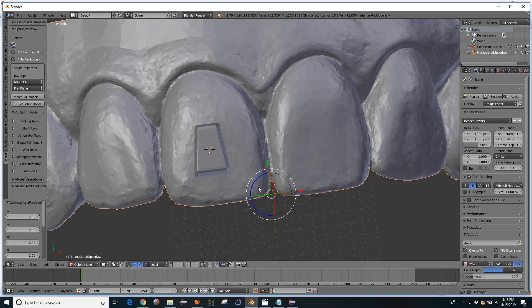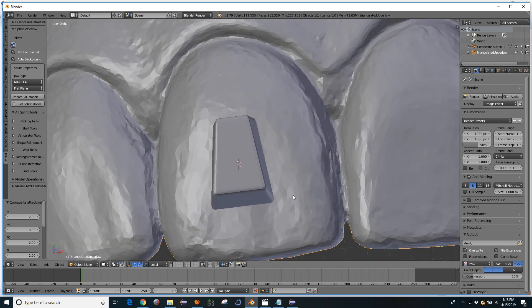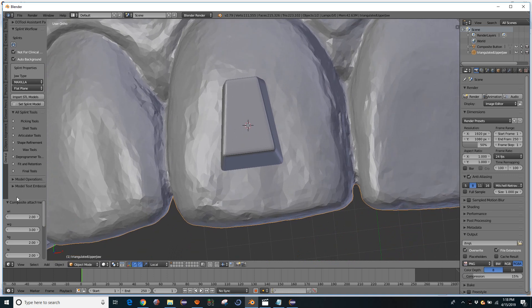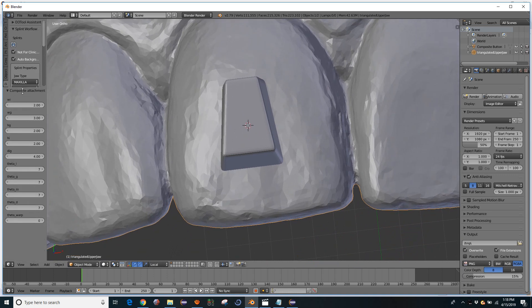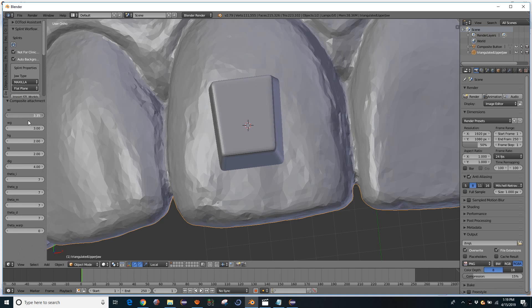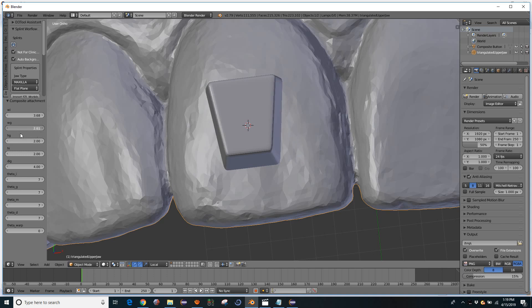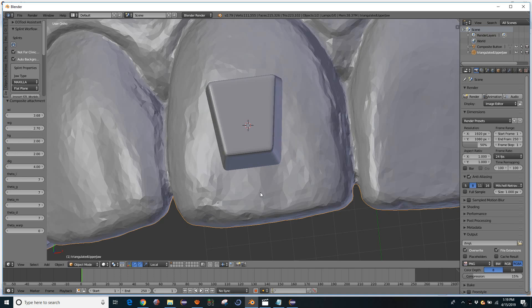Here's the default, this little trapezoidal looking thing. But right after you make it, you can adjust all these different parameters. I and G are envisioning an incisal and gingival width. They are reversed in this case because it has no knowledge of the tooth underneath it.